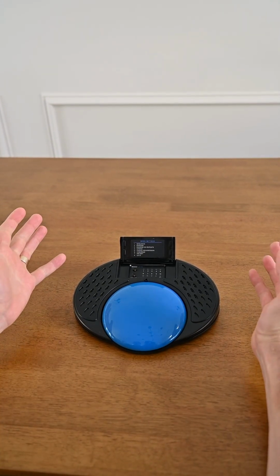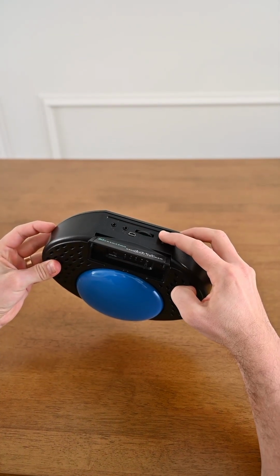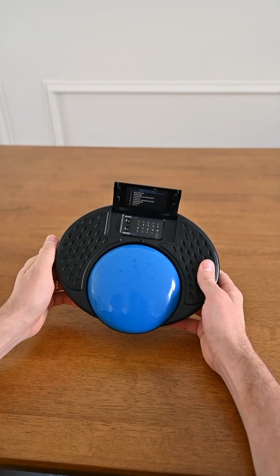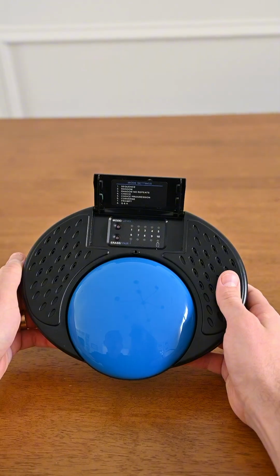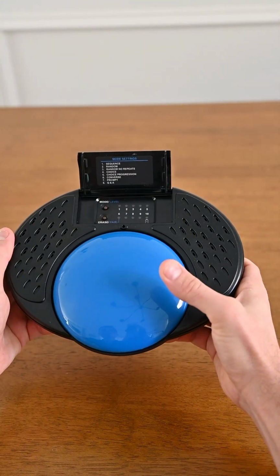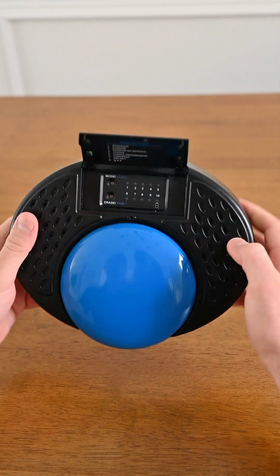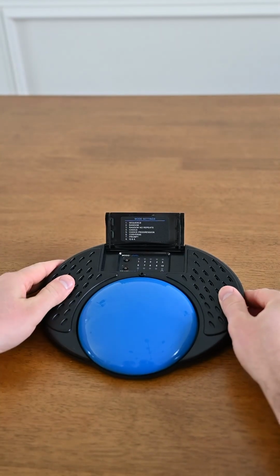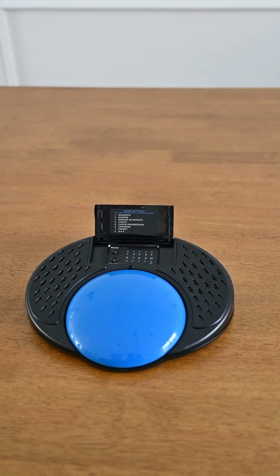If for some reason we want to erase the messages that are on that level, we press and hold the record button again and hit erase. Erasing. Level 1. Complete. So now all the messages on level 1 have been erased and we can record messages again. And once we've finished recording, we press the record button again and we're ready to go. So I'll show you how each of these modes work, what they do, and how to set them up.